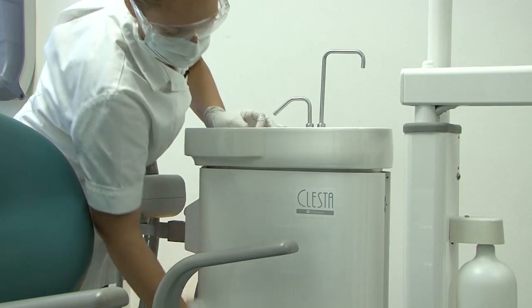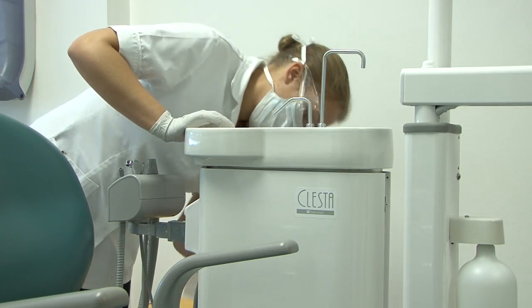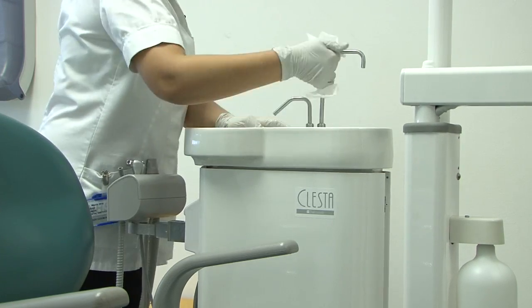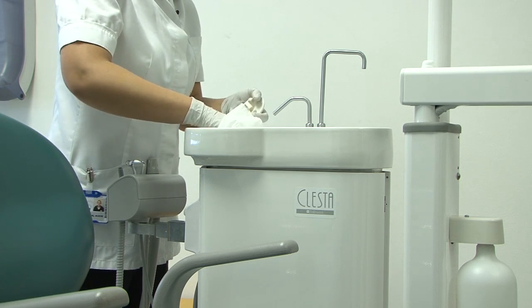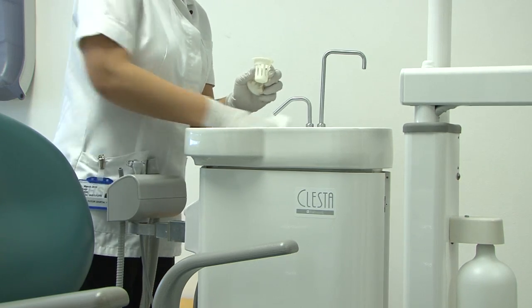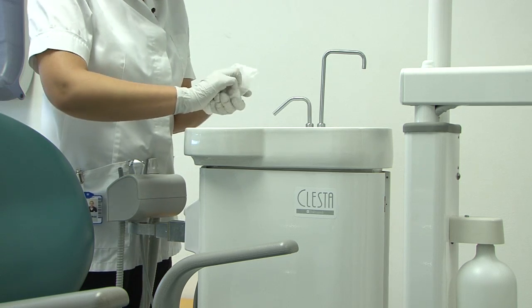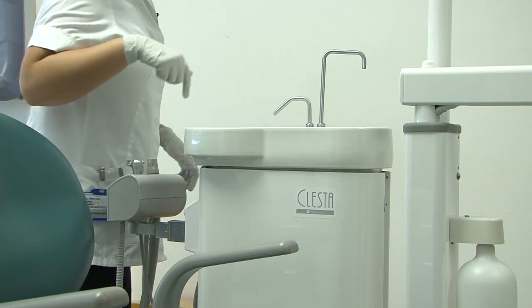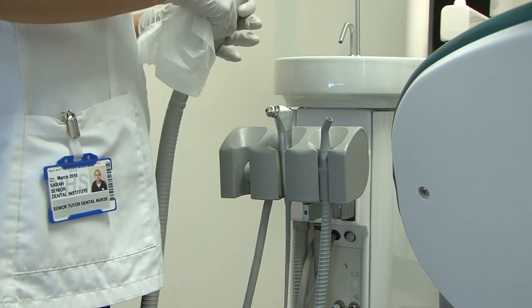You wipe down both sides of the spittoon. The spittoon needs care because it's the muckiest part of the job. You then wipe the taps and the spittoon, and take out the basket to make sure there's no debris — if there is, dispose of it in the clinical waste bin. Then wipe over the lid and dispose of your wipe in the clinical waste bin. Wipe over the nurse's switches and each of the suction tubing.